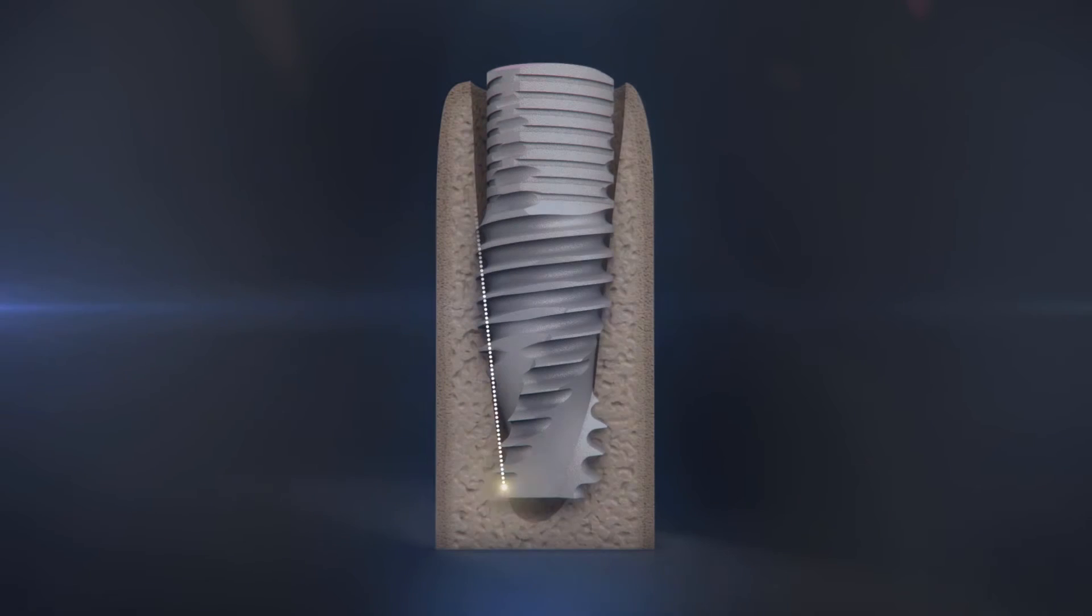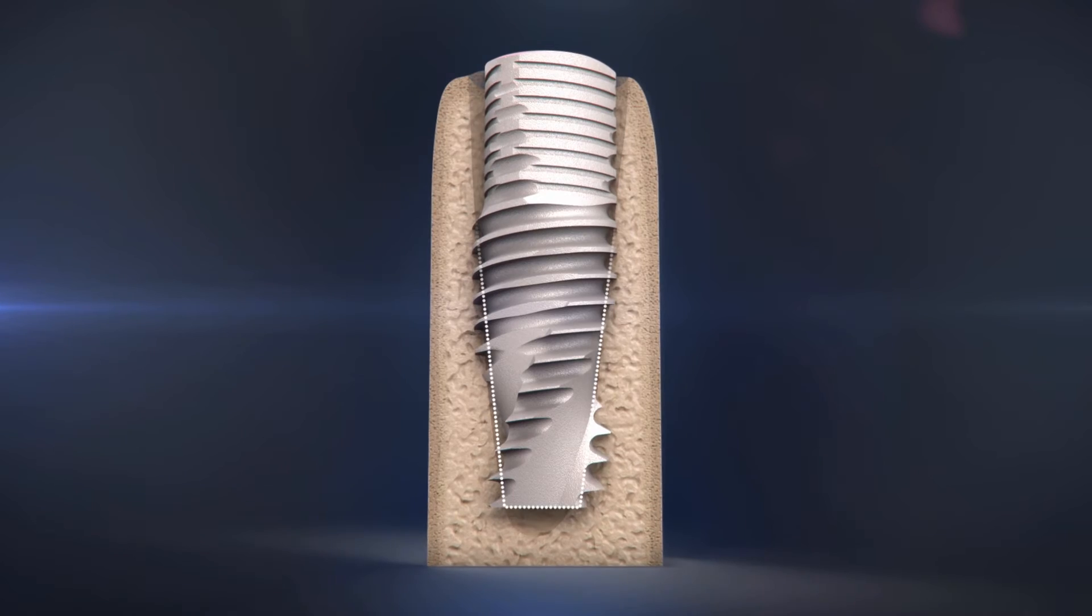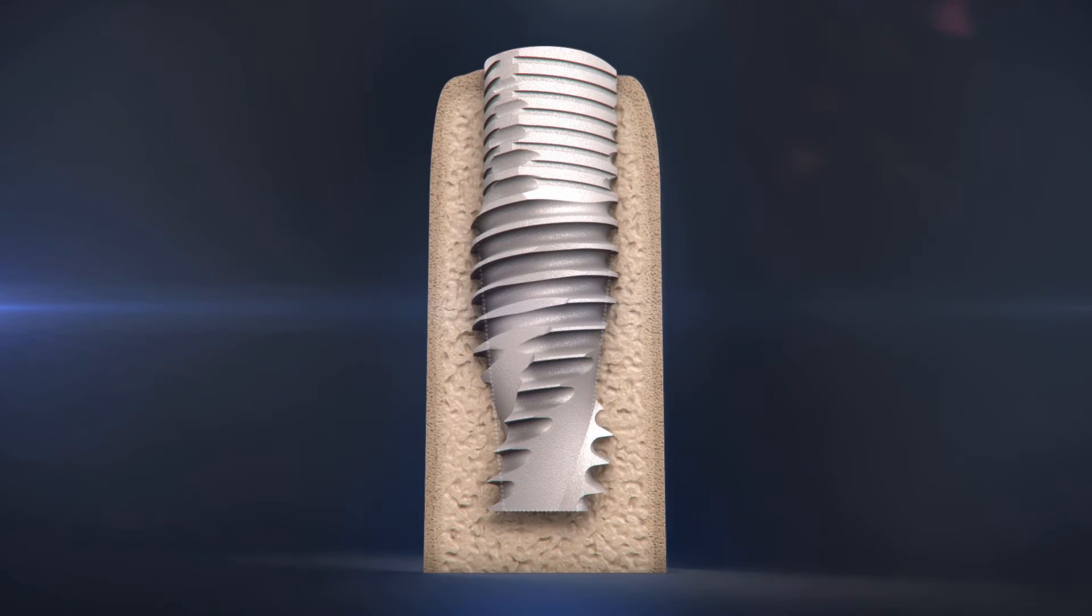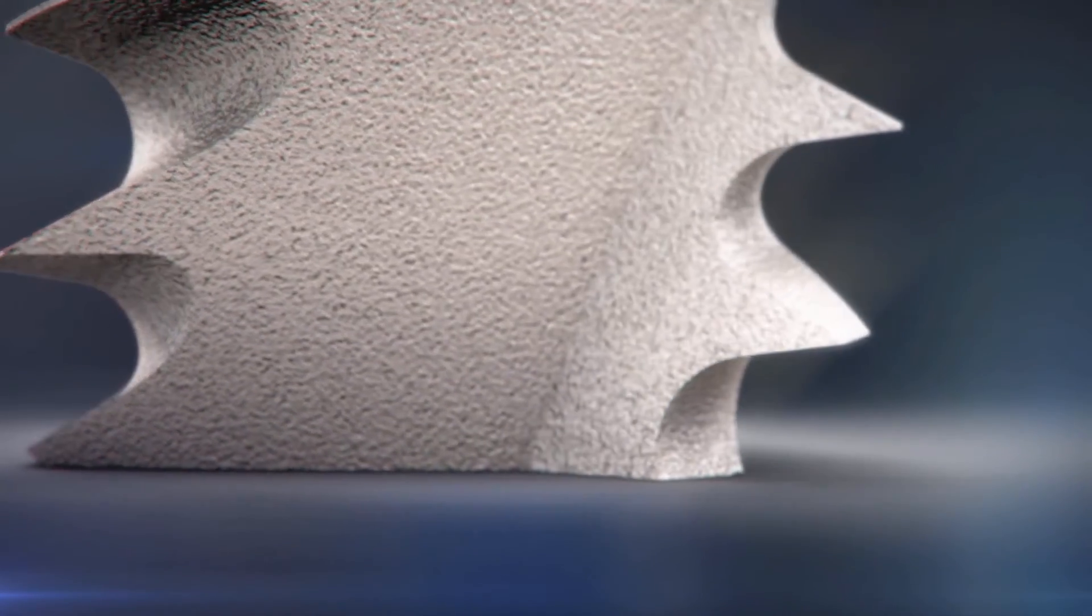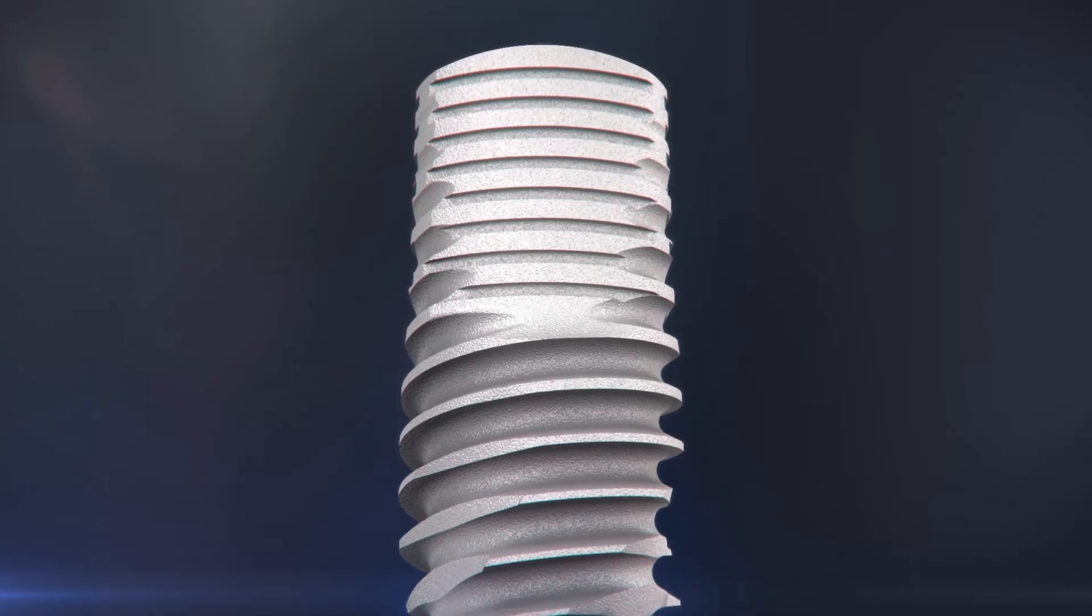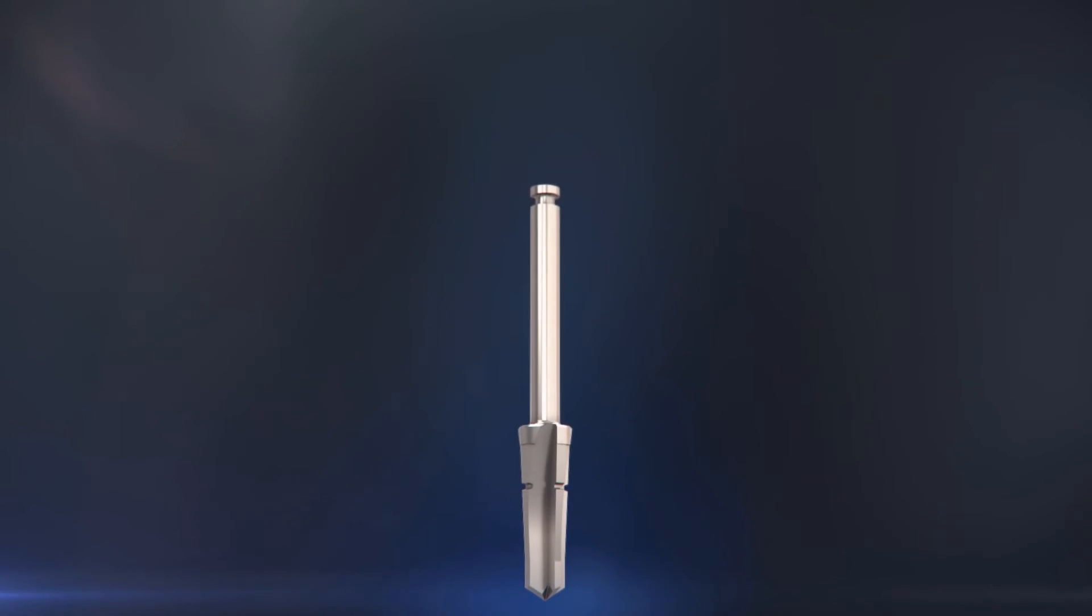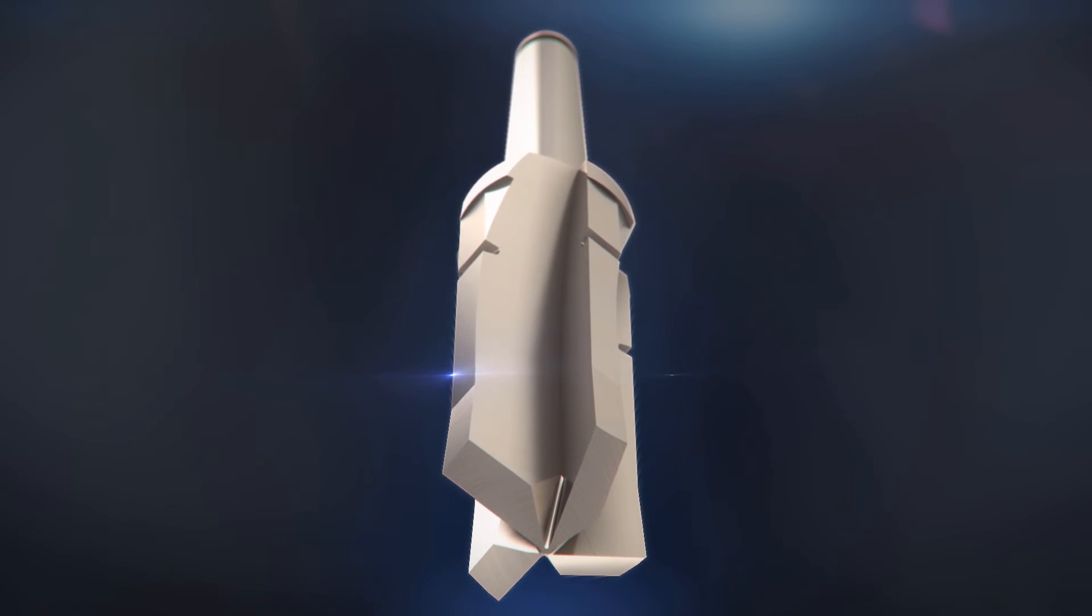The conical lower part of the implant and thread design ensure high primary stability in soft bone and extraction sockets. A flat cutting apex facilitates penetration to underprepared alveolar bone when indicated. A final step drill is provided with each implant to ensure highest cutting efficiency and ideal osteotomy preparation for each implant.